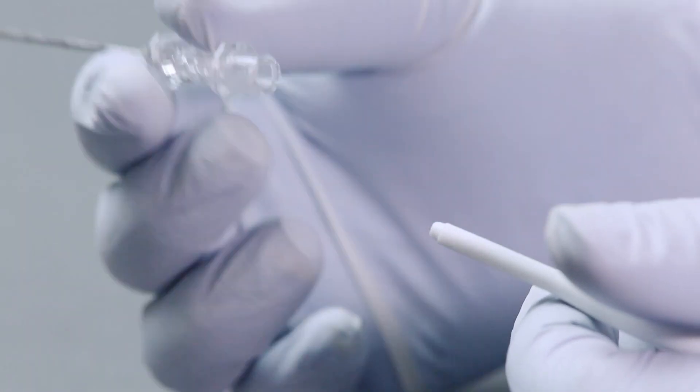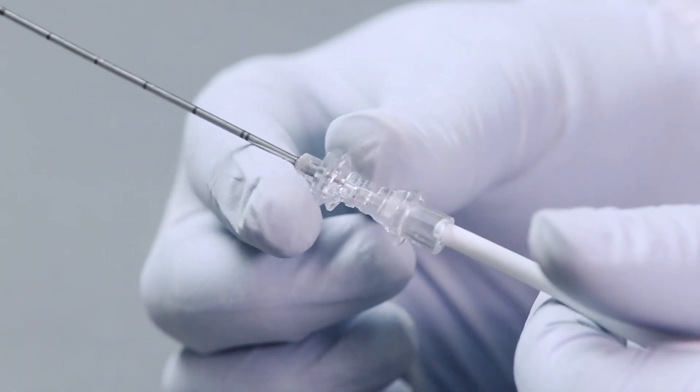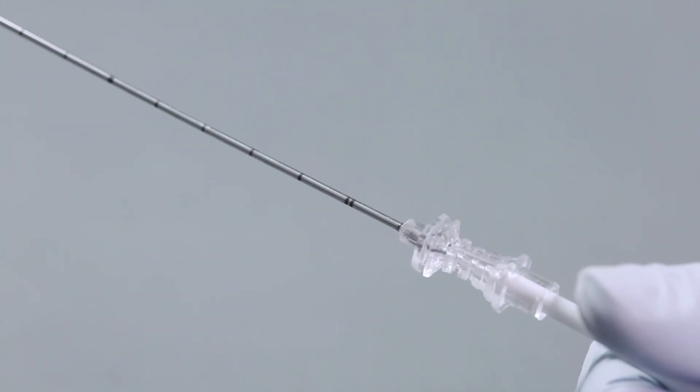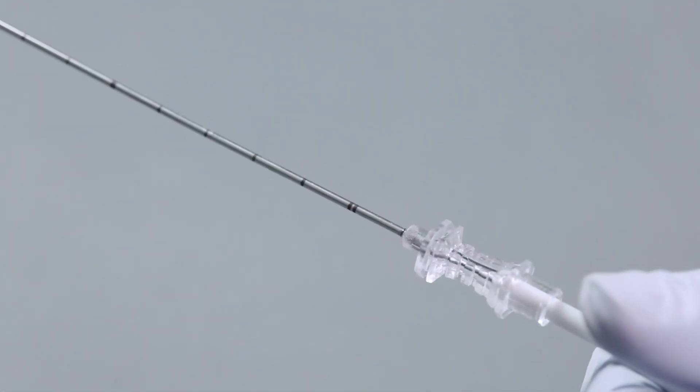Dispenser nozzle can be inserted into standard luer of catheter or needle. This aids easy insertion of the guide wire.